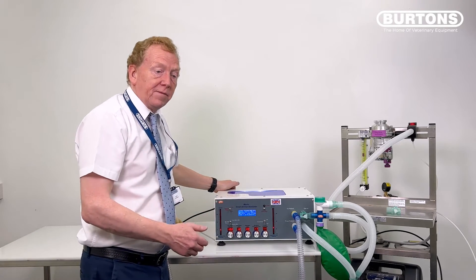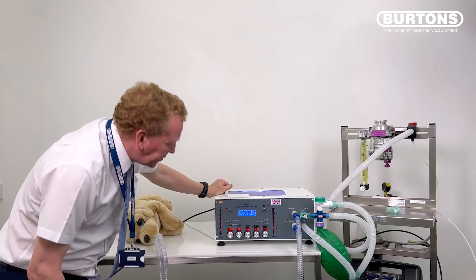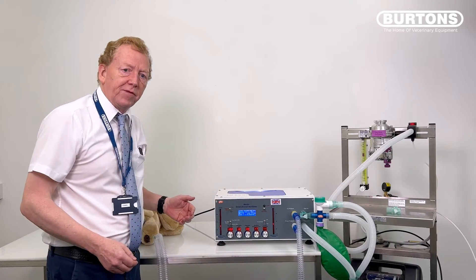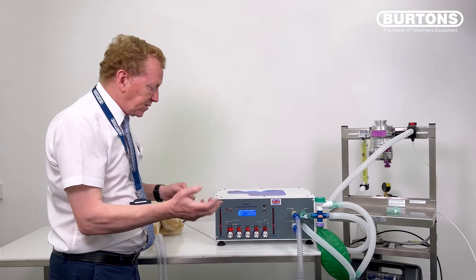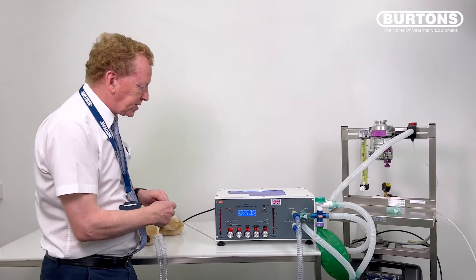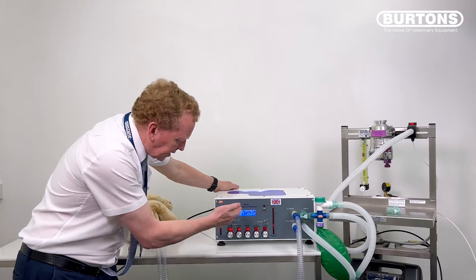And that's it. I've got an airway pressure of 10. I'm happy with that. I've got a tidal volume of 100 mils. I'm very pleased with the way that's performing. So this is volume cycling. Just to very quickly run through what we would do if we were pressure cycling. I've got a pressure of 10 and 100 mils.